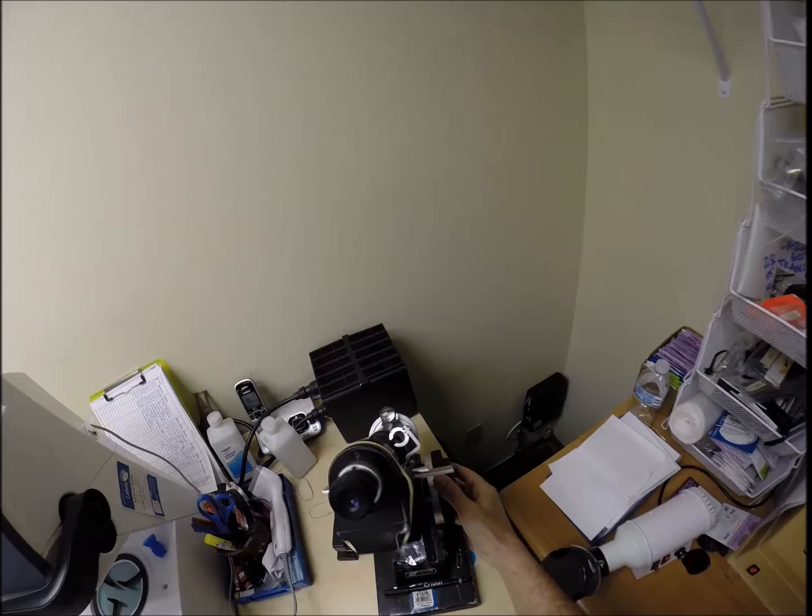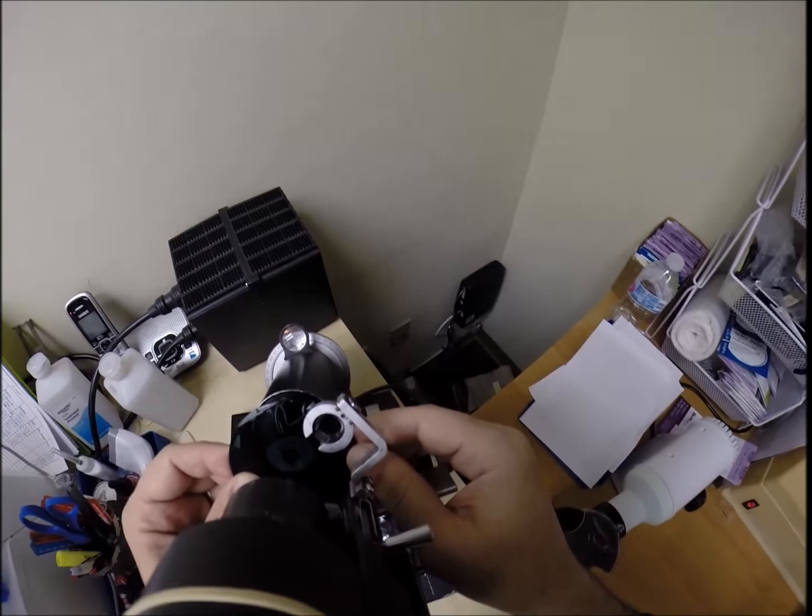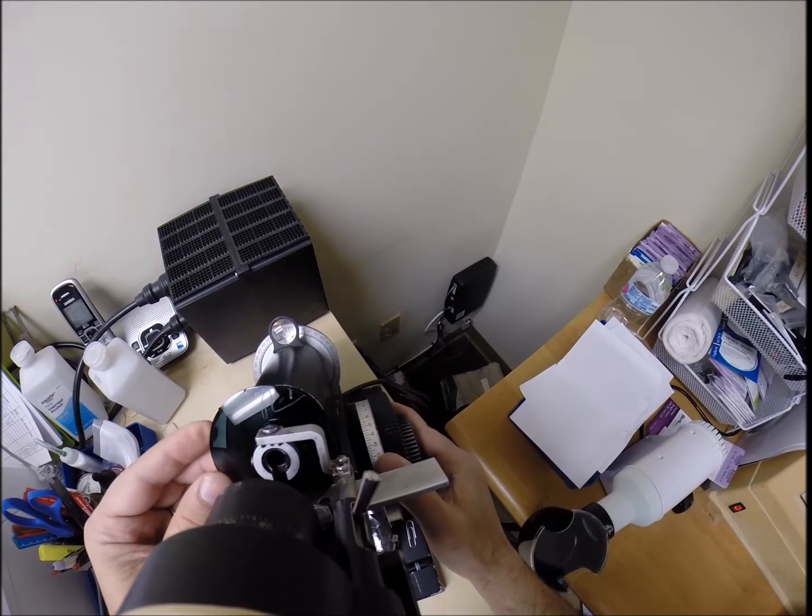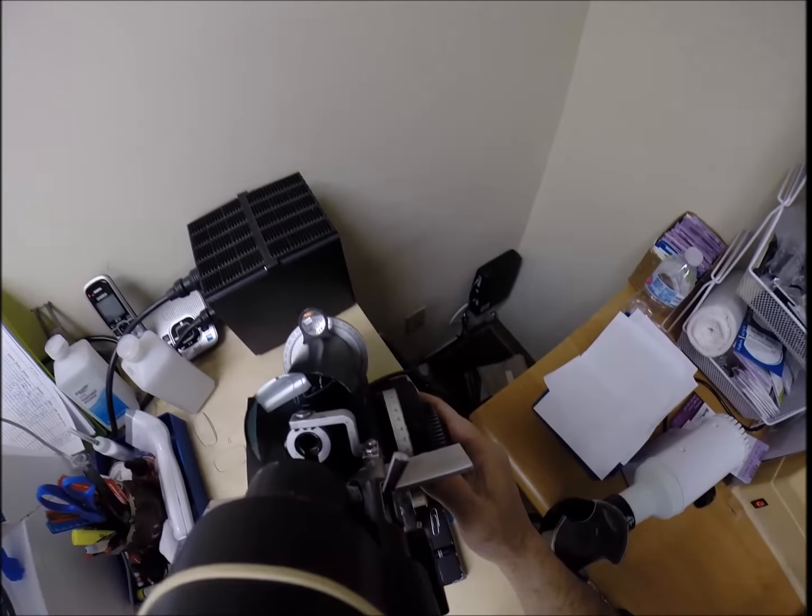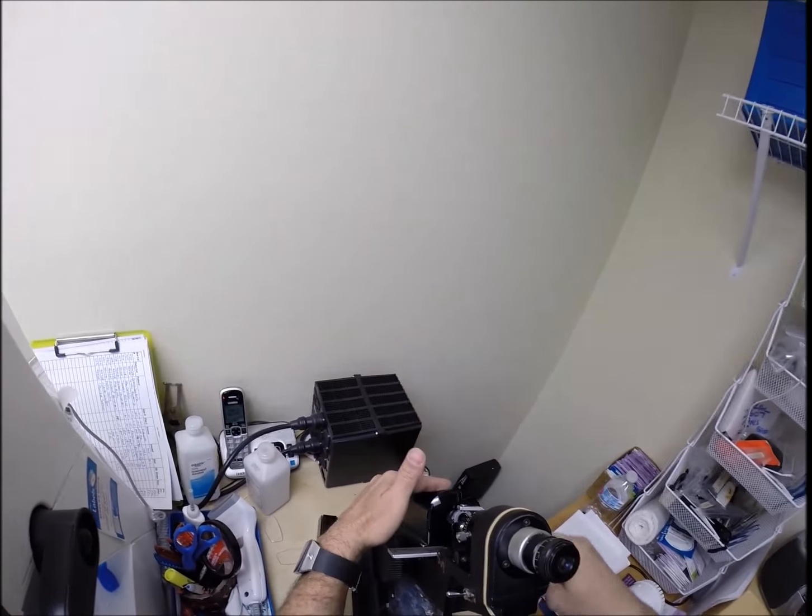Okay, so the power should be at, let's make sure everything's at zero. Put the power on minus one. Put the lens in. With a gradient, I don't have to rotate. I almost know exactly where everything is. Minus one, minus 50. Let me just double check the powers. That's good. And put a couple dots on there. There we go.